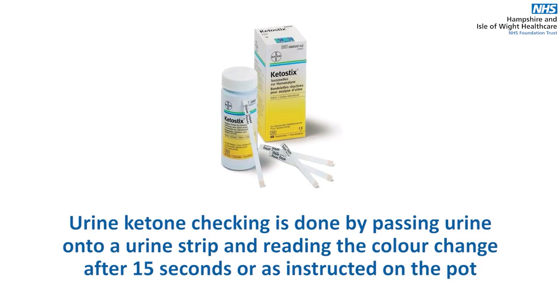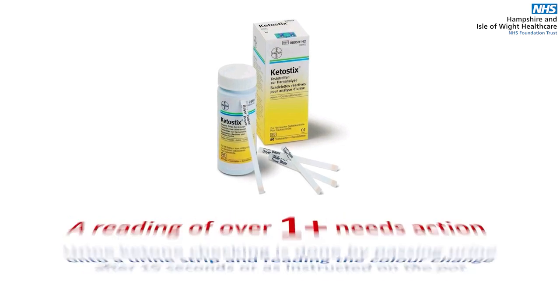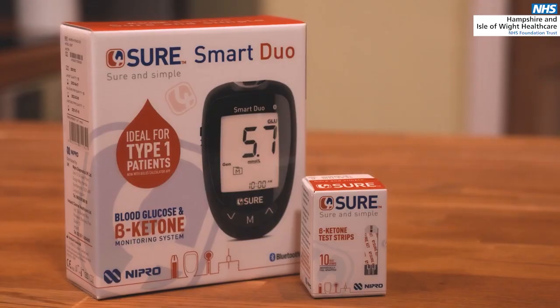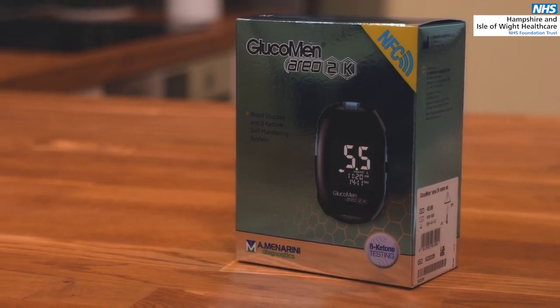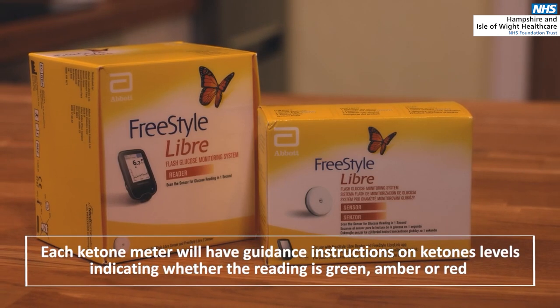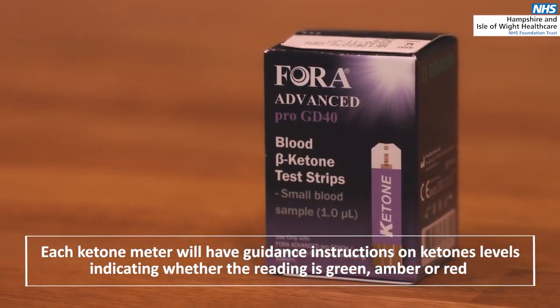Urine ketone checking is done by you passing urine onto one of the urine strips and reading the colour change after 15 seconds, or as instructed on the pot. A reading over 1+ needs action. There are a number of glucose meters which also check for ketones, but not all meters check for both glucose and ketones. Each ketone meter will have guidance instructions on ketone levels, indicating whether the reading is green, amber or red.